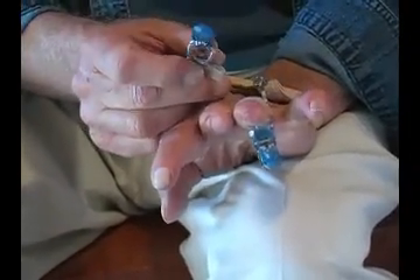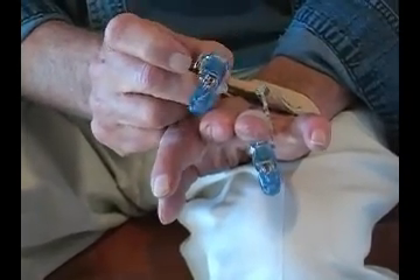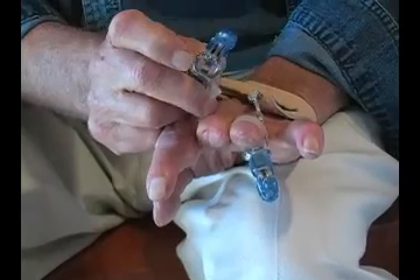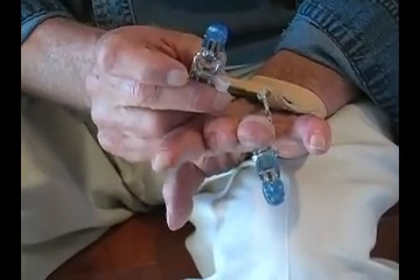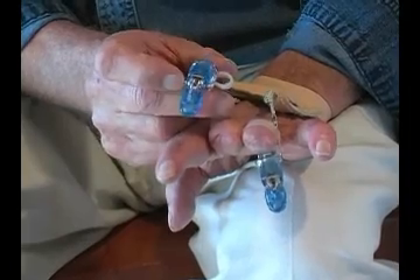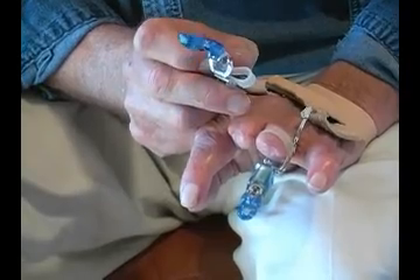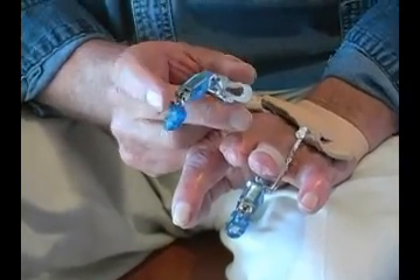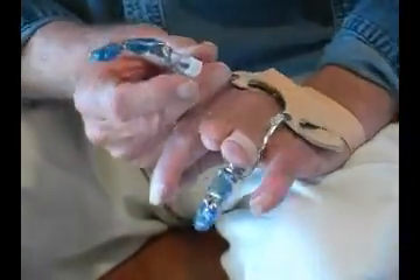The actuating bars have an interesting thing about the finger: we always think of it, when we hold our hands straight, as being the longest in that position. That's not true. As the finger curls — even the natural finger — it actually becomes longer. And that's because of the function in your knuckles. And this mimics those perfectly.